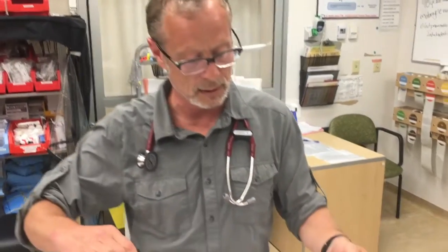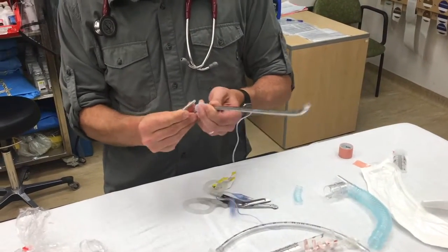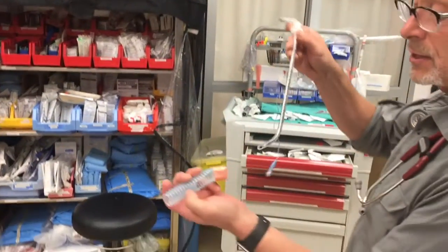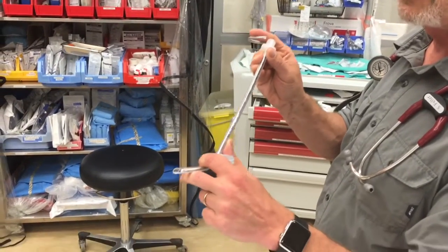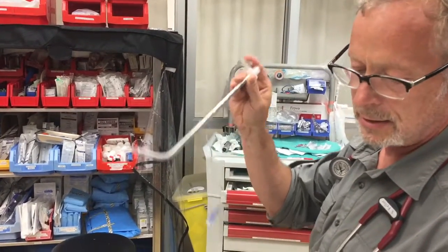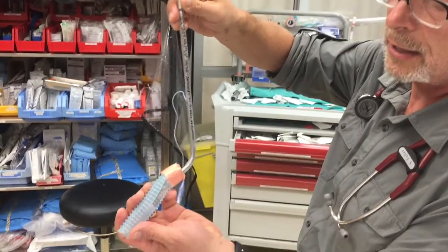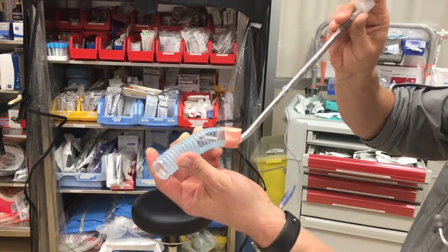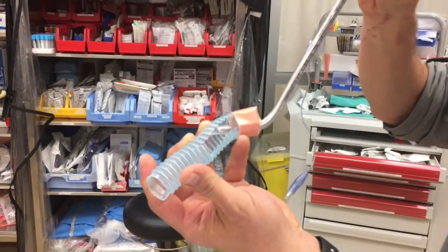Now if we're doing video laryngoscopy — and the same thing happens with direct laryngoscopy, from observation of a study reviewing GlideScope video looking at corrective maneuvers — this tends to happen when you have too acute a bend, and bends beyond 60 degrees are probably most at risk. The leading edge of the bevel is getting caught on the tracheal rings, and people are having problems advancing it.